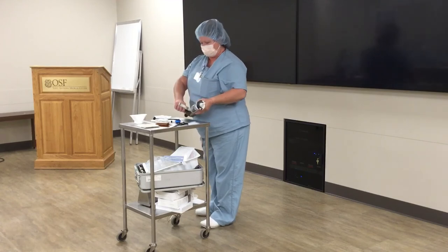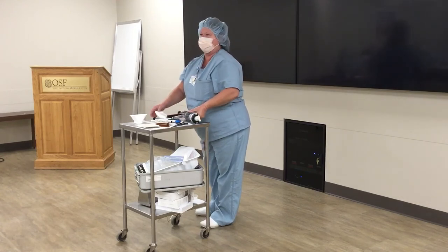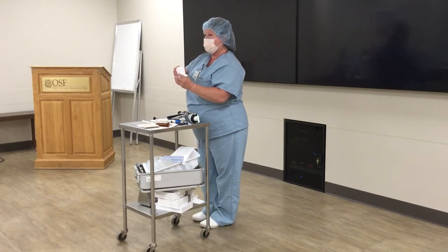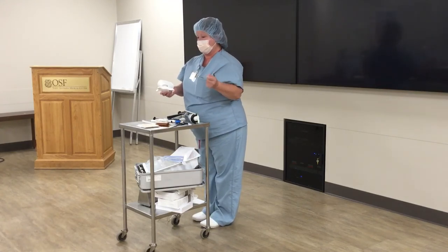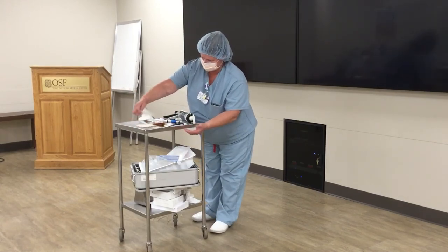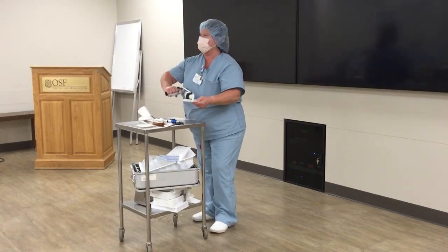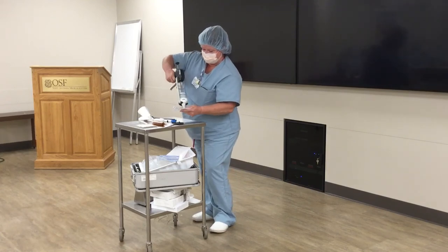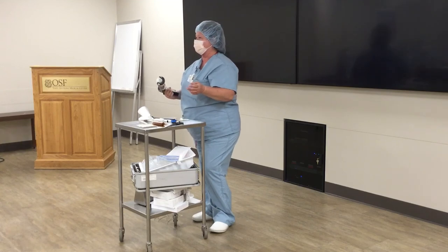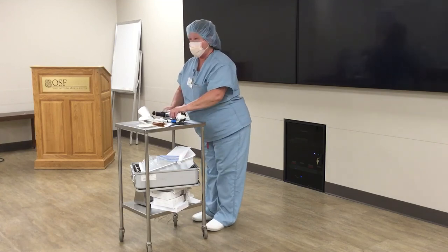It's pretty simple, but I know a lot of people who are in ortho a lot haven't seen the gun, because a lot of times we just use the bowl. With people doing cases later in the day, I just wanted to make sure everybody knew how to use the gun. Any questions?